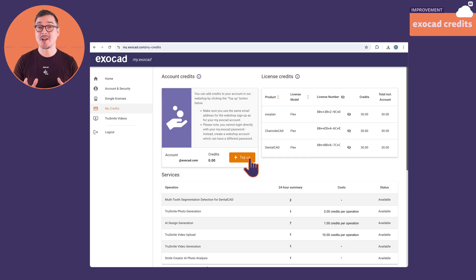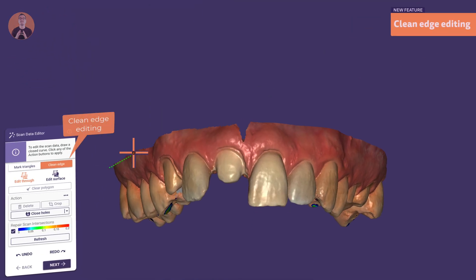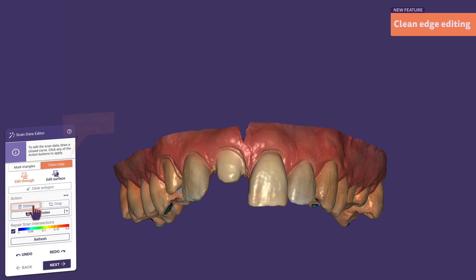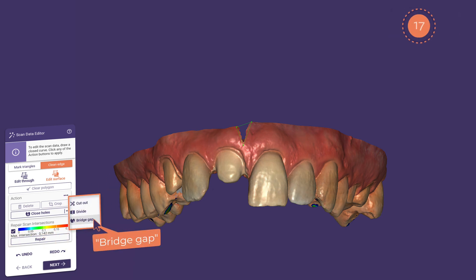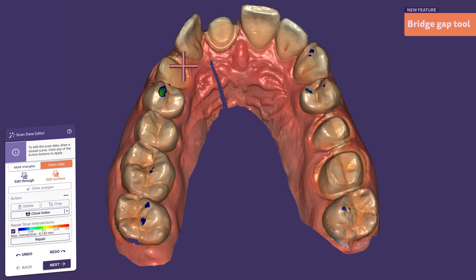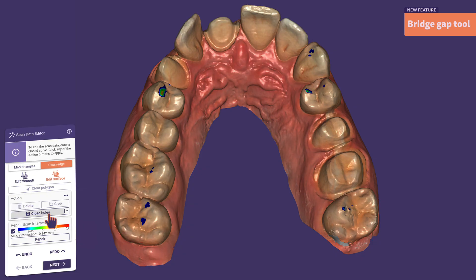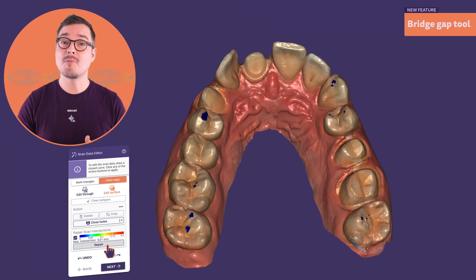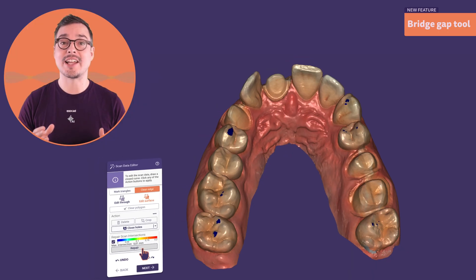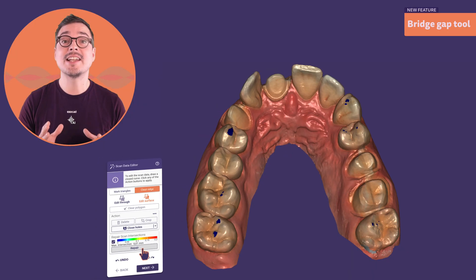The improved mesh editing will make a real difference in daily work. In addition to precise triangle-based cutting, you can now also get clean, smooth edges. You can edit the surface with more precision, and the new mode includes a brand new gap bridging feature that makes it super easy to connect areas of the mesh for fast and reliable repairs — even bigger areas can get fixed with ease. Intersections can also be monitored and repaired with just one click.